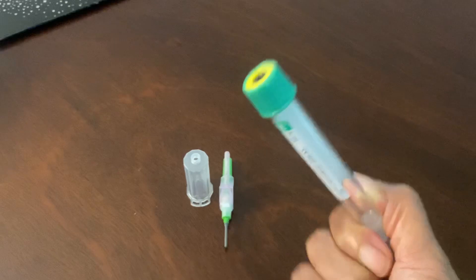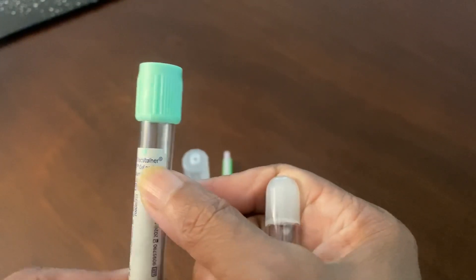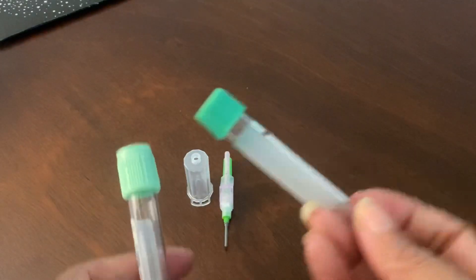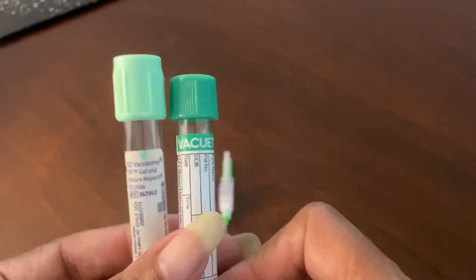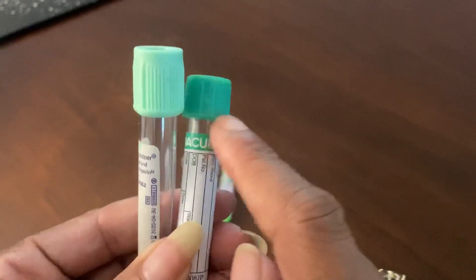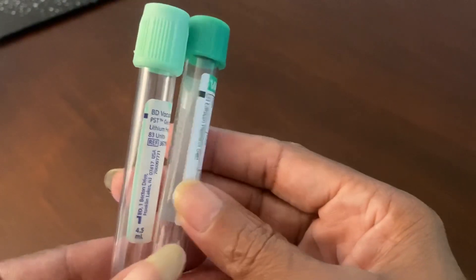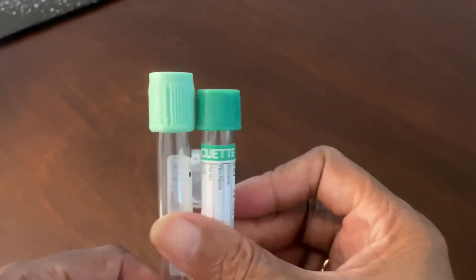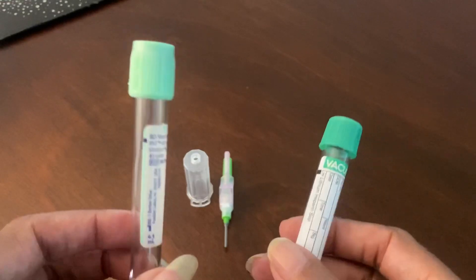So that's the manufacturer for this type of cap. I'm going to say 'cap' right now, but I'll give you the proper term shortly. And then this is BD — this is the brand that I've used forever during my time in phlebotomy. BD is Becton and Dickinson. I don't know which one you'll see the most, but the caps have a distinct difference in color. Be careful because this could be misidentified — you could interpret this tube as a dark green top tube, but it's actually a light green top tube. So always look at your label and see the additive. This is the lithium heparin tube.